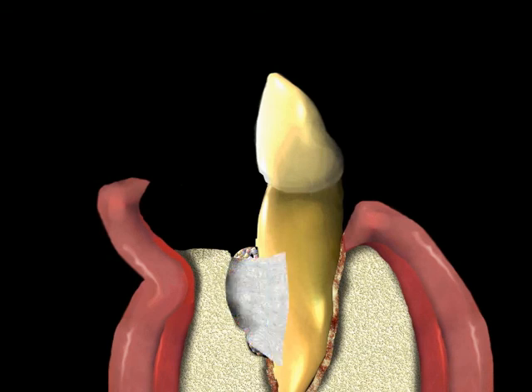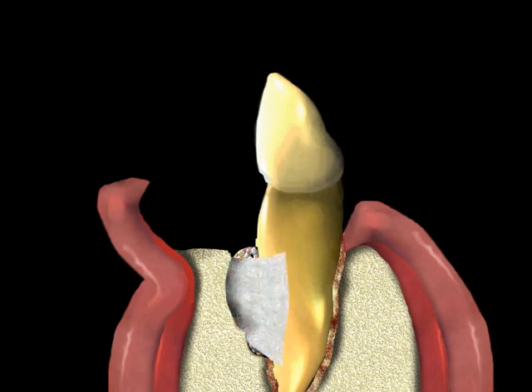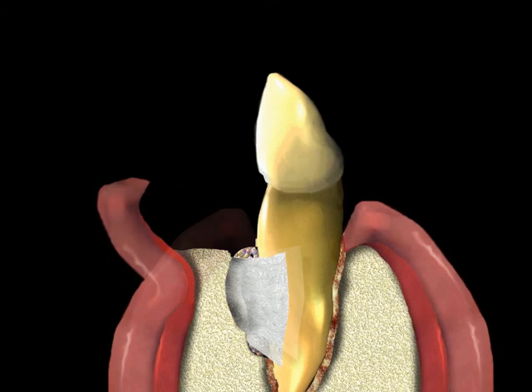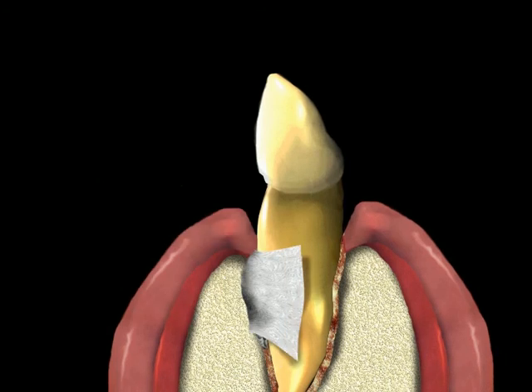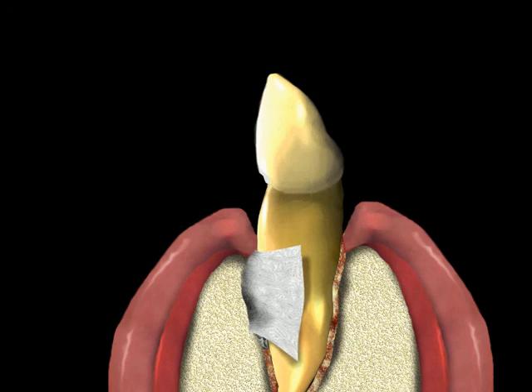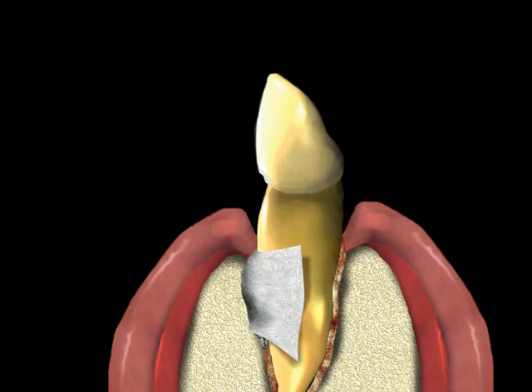To get the correct type of tissue to fill the defect, the surgery may include the placement of a membrane over the bone defect. The membrane is a special type of material that is well tolerated by your body. This membrane or barrier is used to keep soft tissue from getting into the defect, encouraging the defect to be filled with bone and connective tissue derived from bone.